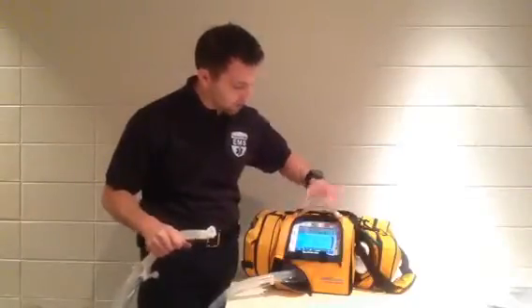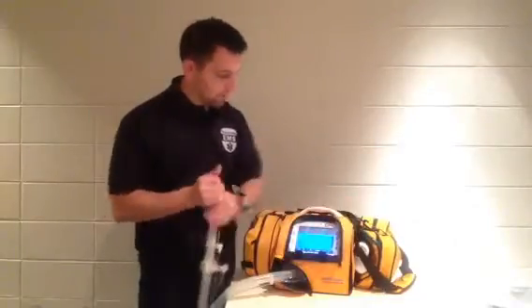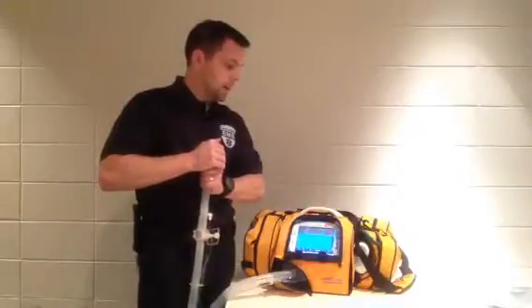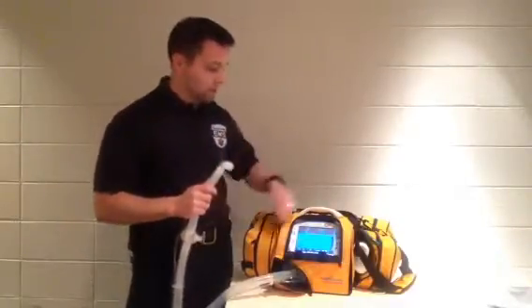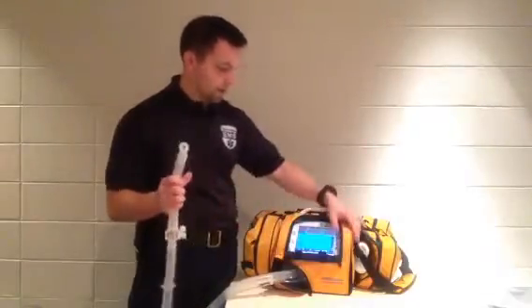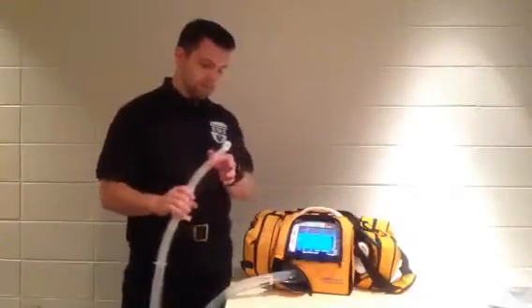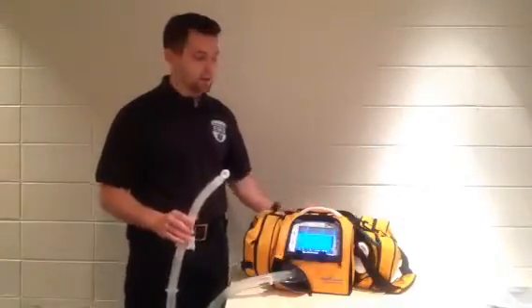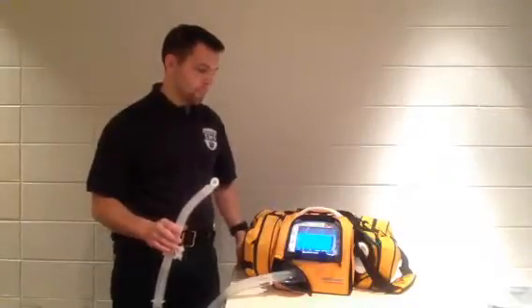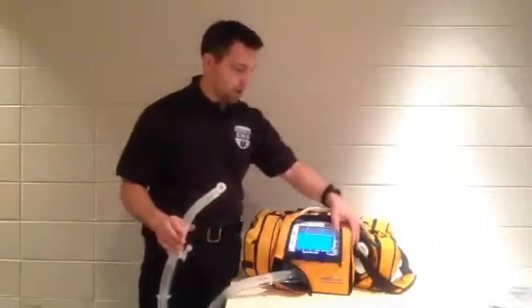If we go ahead and do circuit check it's going to ask me to occlude the end. So I just read the directions, occlude the end and press accept. Now it's pressurizing this and checking for any leaks. It passed that with a little release of gas. The next step is to open the patient's circuit — it's now open and press accept. And then you're going to hear it go through about four or five levels of fan speed, which is an internal diagnostic to make sure it's able to run the ventilator at the correct settings. Then it says circuit check passed — press accept.